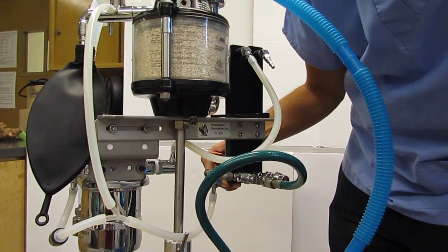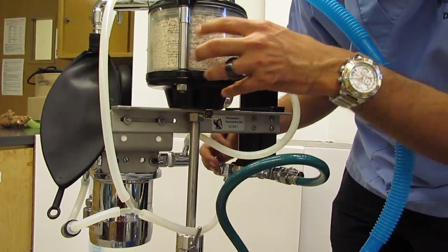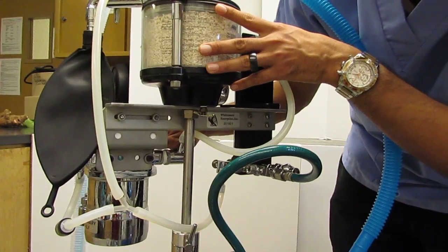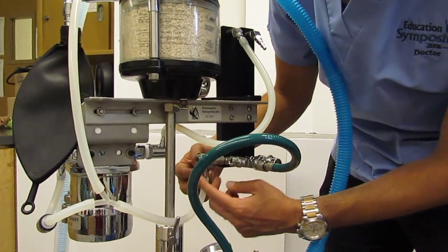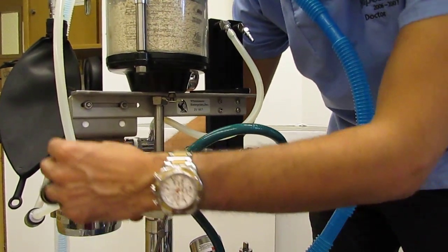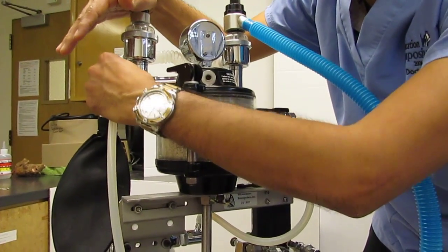When I press this button, what I'm doing is I'm sending oxygen bypassing the flow meter, bypassing the vaporizer, and sending oxygen from this green hose directly into this hose, and up into the inspiratory, one-way, unidirectional inspiratory valve. Okay?